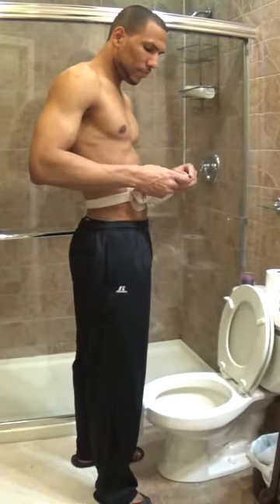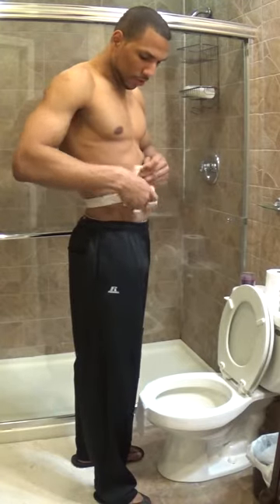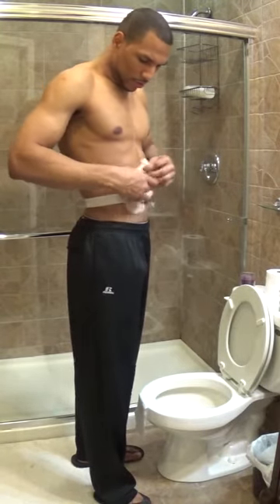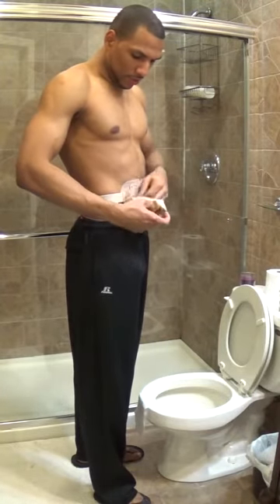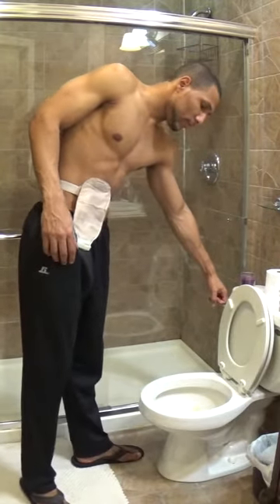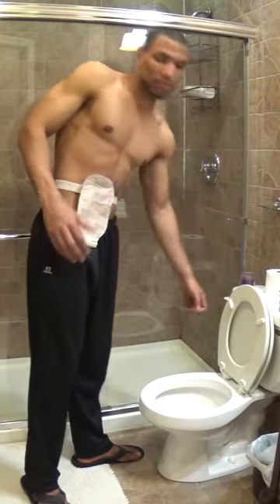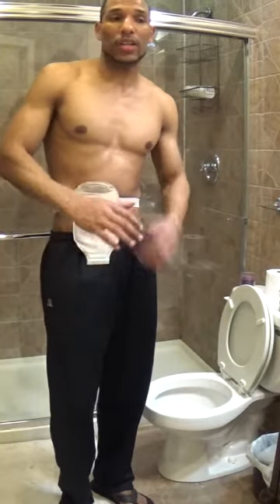Then you just fold it up, close the bag, and you're going to massage it around. You're going to get all that liquid in there to make everything smell better — the bag is going to feel better, it's clean. Close your toilet, of course. Wash your hands, and that's about it. Quick and easy, and you're on your way.